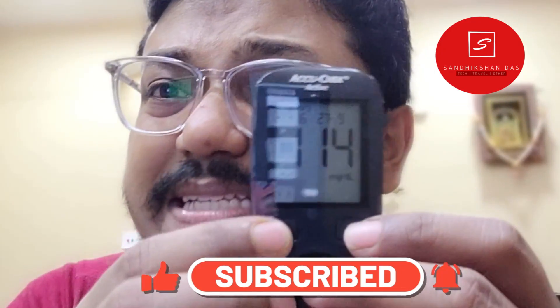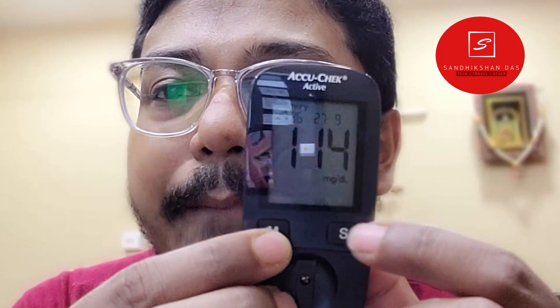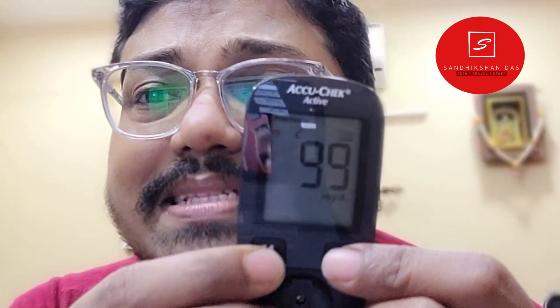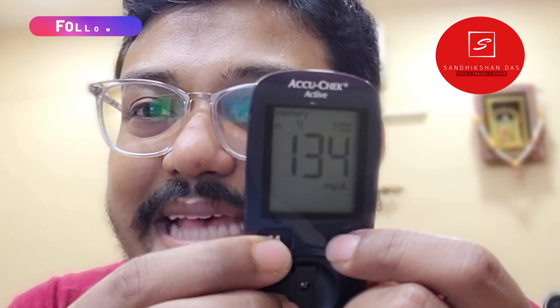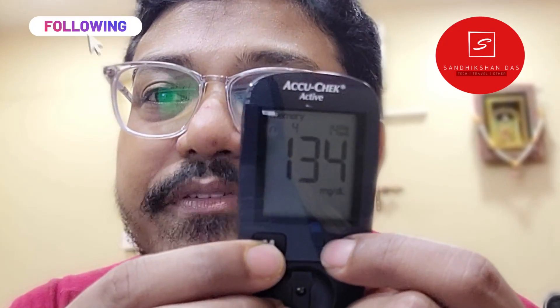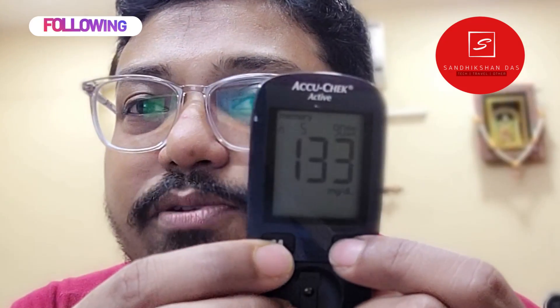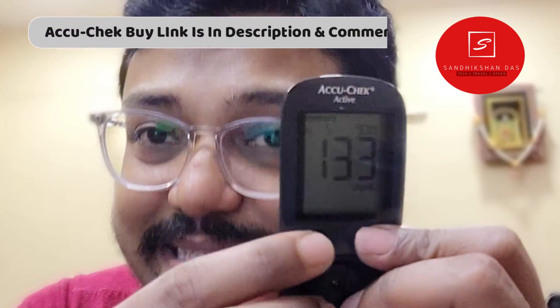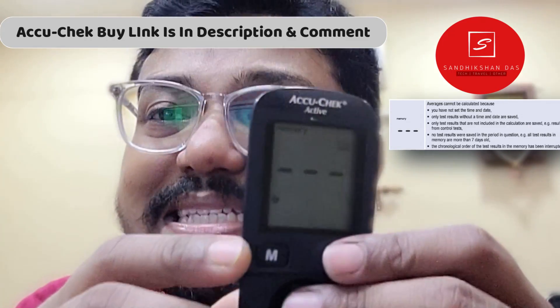To see the average test results, when you are in memory mode you will have to press the S button. If you press the S button once, it will show the seven-day average result. Press it again and it will show the 14-day average. Press it again for 30 days, and press it again for the 90-day average result. If there is no average result saved, it will display accordingly.